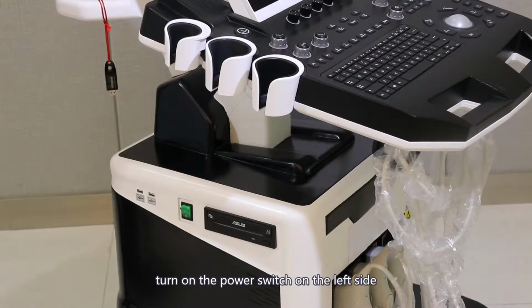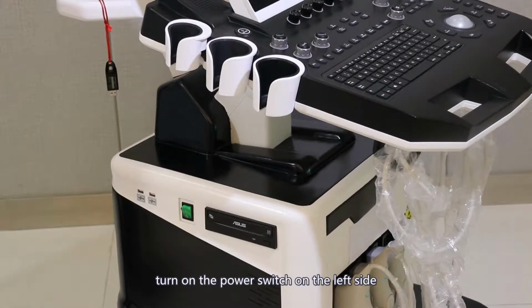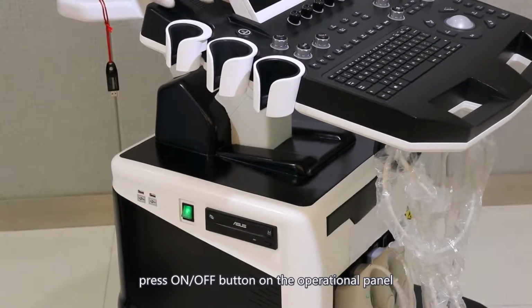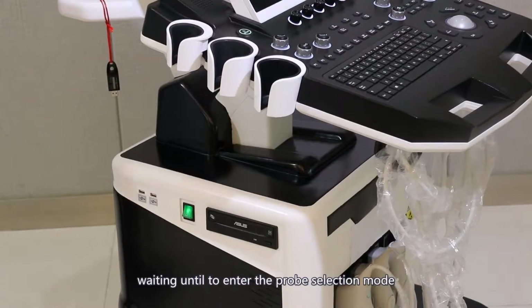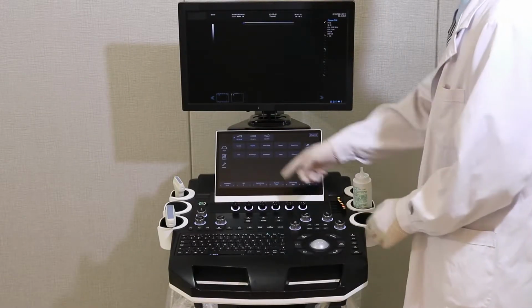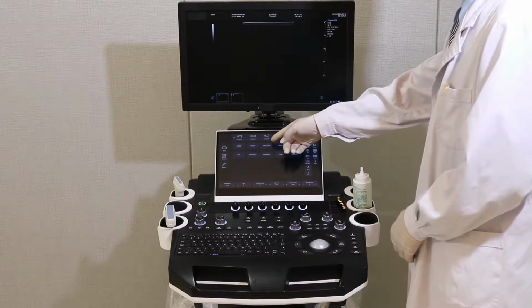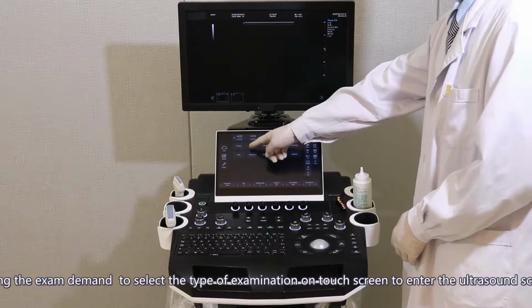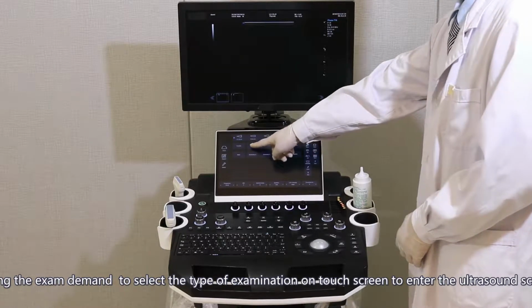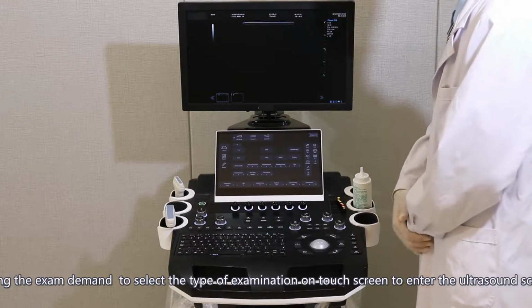Turn on the power switch on the left side. Press the on or off button on the operational panel. Wait until it enters the probe selection mode. According to the exam demand, select the examination tab on the touchscreen to enter the ultrasound scan state.